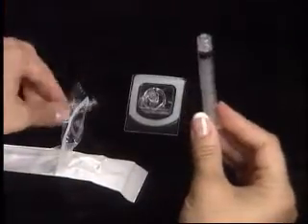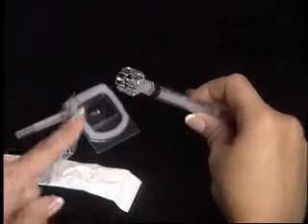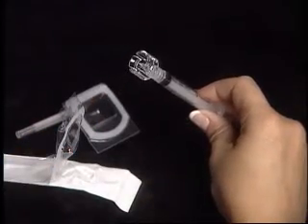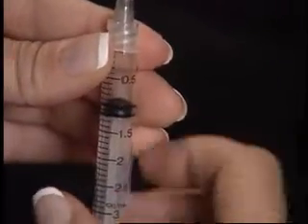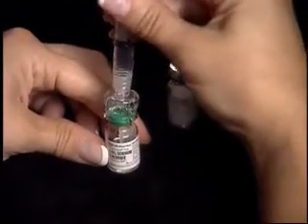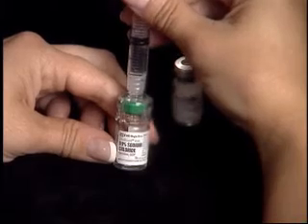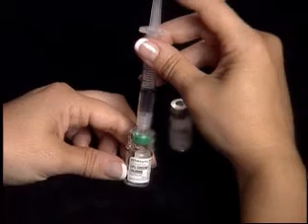Open your 3 cc, one-and-a-half-inch syringe and remove the needle by twisting it counterclockwise. Carefully twist the syringe onto the Q-cap until you feel a slight resistance. Do not touch the spike end of the Q-cap. Draw back 1 cc of air into the syringe. Hold the syringe and place the spike end of the Q-cap over the top of the sterile diluent vial.